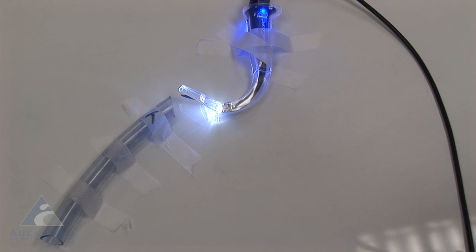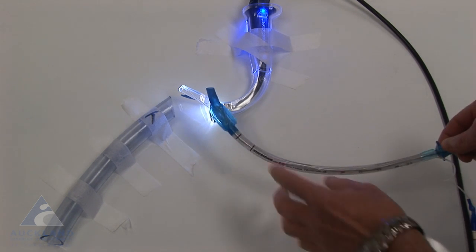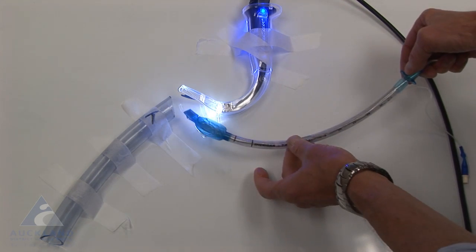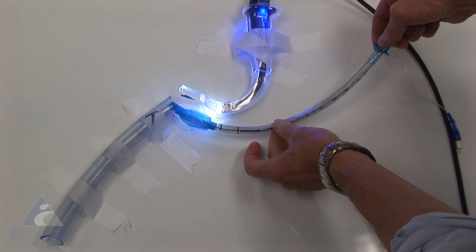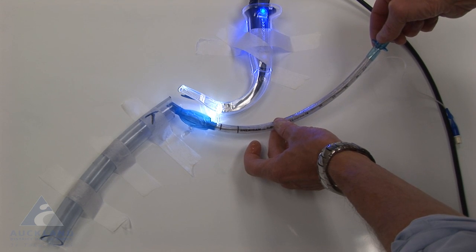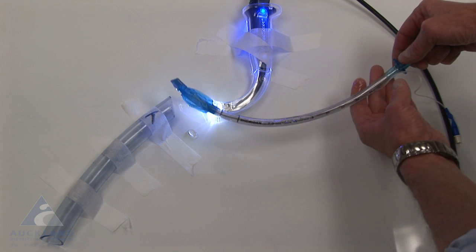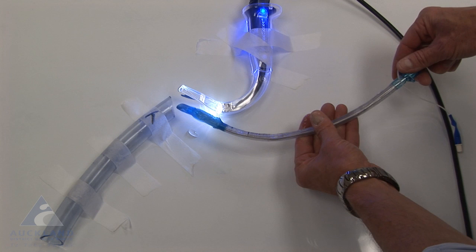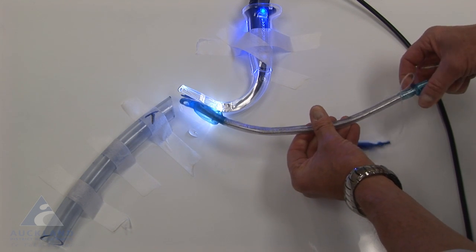The next part of the solution involves a brief understanding of friction. I've put some lubricant on the tip of the endotracheal tube so that when it abuts up here against the anterior tracheal wall, it's going to be easy to break the friction because of the lubricant. I've also put lubricant on the inside of the tube around the malleable stylet so that it's very easy to twist and rotate this particular tube on the stylet.